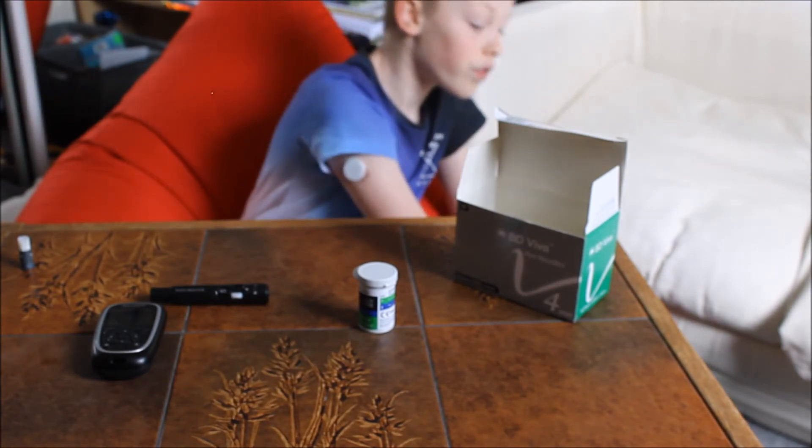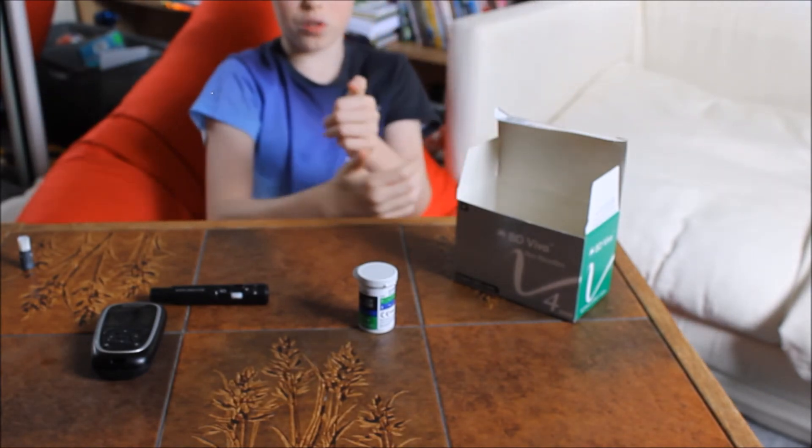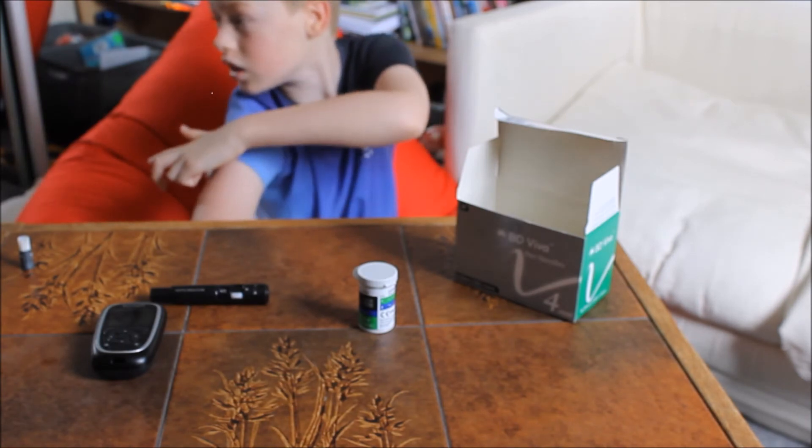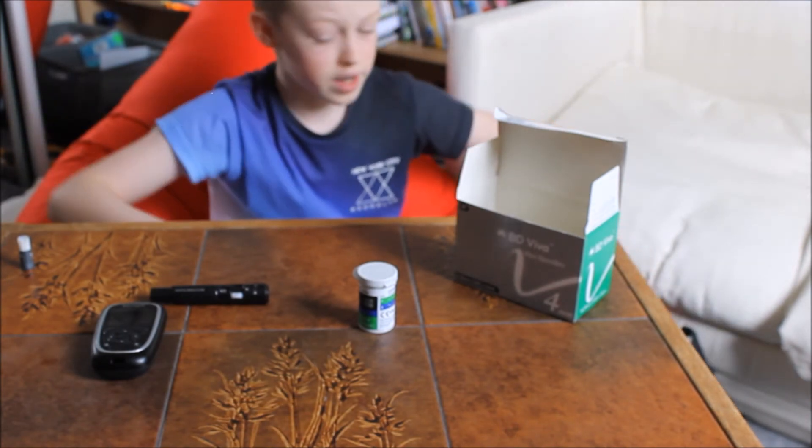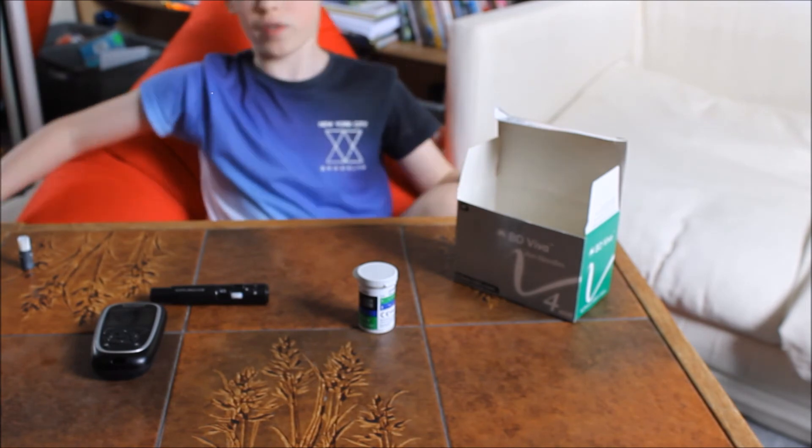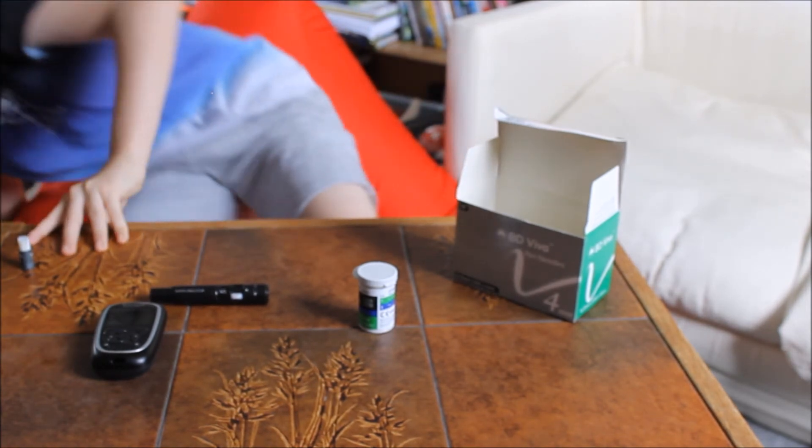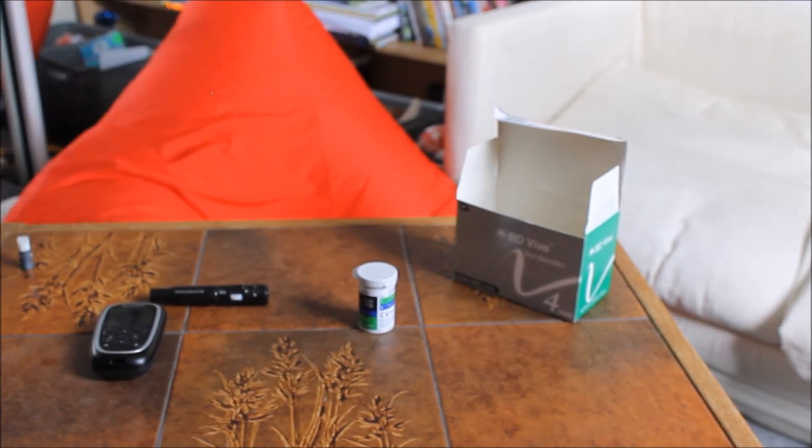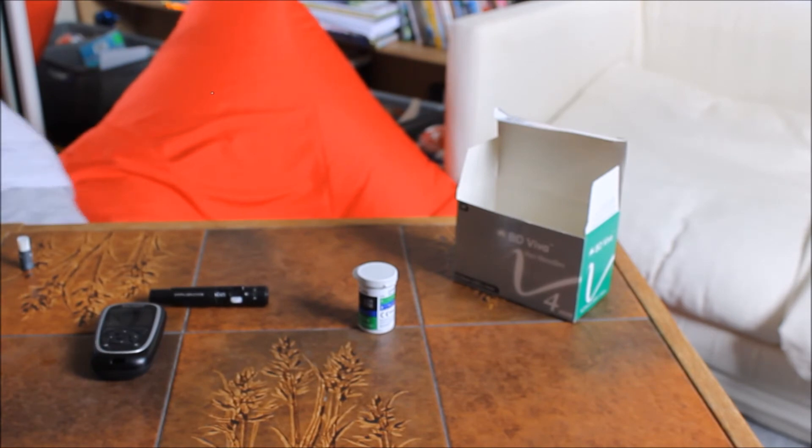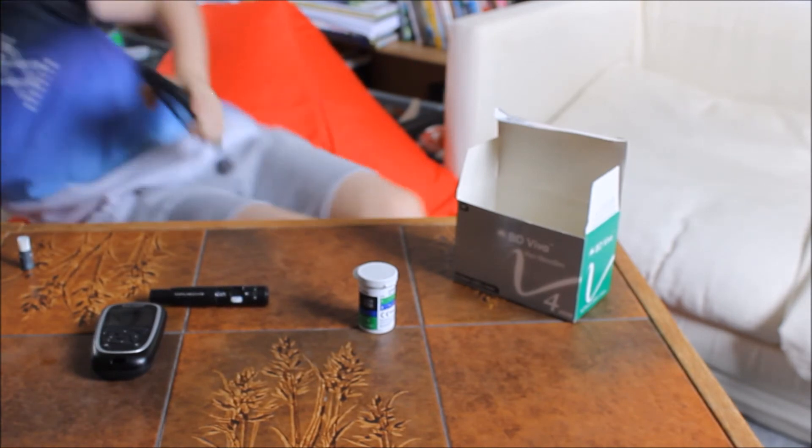You just press start new sensor, scan it on the back, and then it'll just say ready in 60 minutes. But I do it on my phone, so I'll show you what you need to go through.